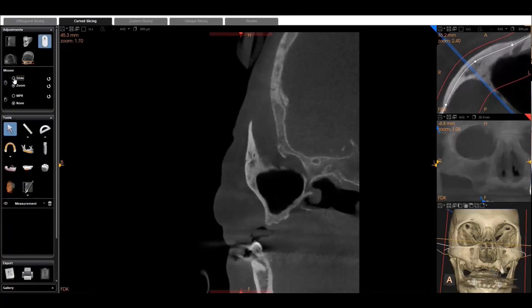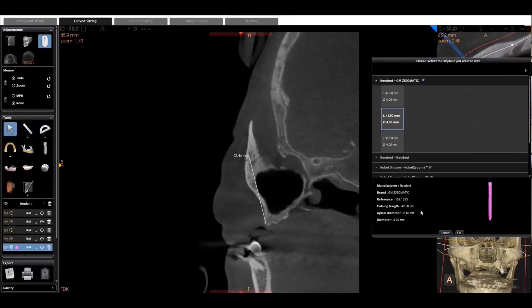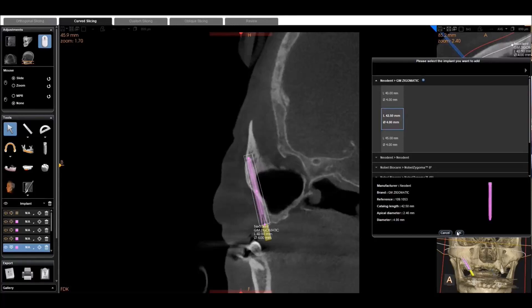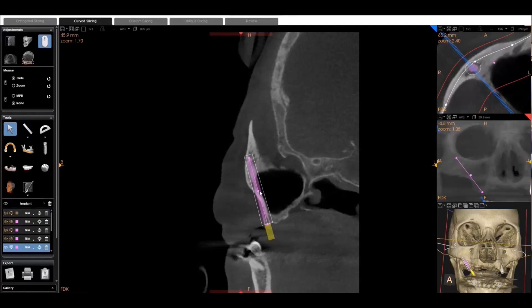So now you can see the implant icon is selected and he's ready to take an implant measurement. You'll notice that he's actually beginning the measurement in the zygoma, which would flip the implant upside down. So you always want to begin the measurement in the maxilla and then end in the zygoma. It did flip it upside down — I've edited that part of the video out to save some time — but I just want to be clear: begin in the maxilla and end in the zygoma. Also, just so you understand, if I created an implant that's 55 millimeters long, when I take my measurement here to plan, I want to take a measurement that's pretty close to 55 millimeters, and that way the implant that I created will be automatically populated.